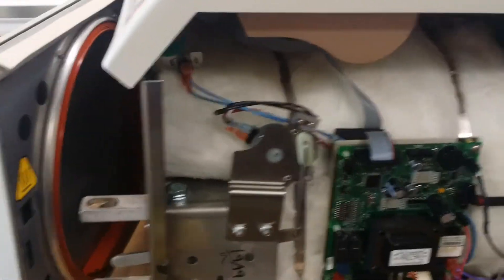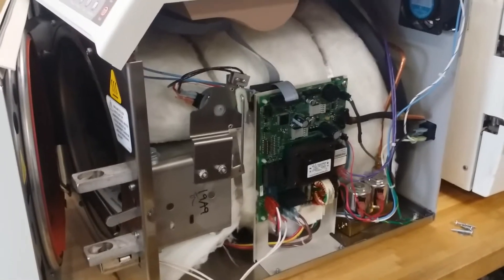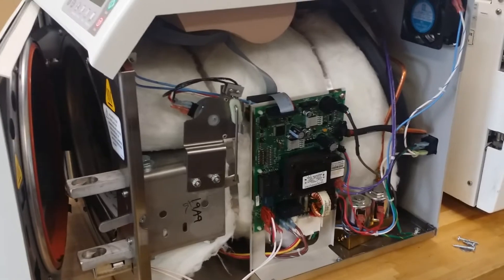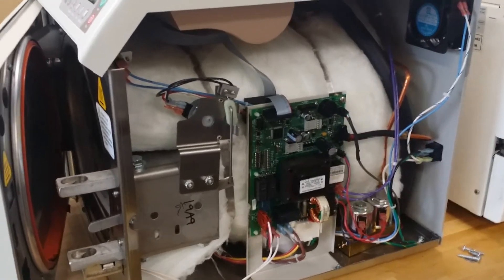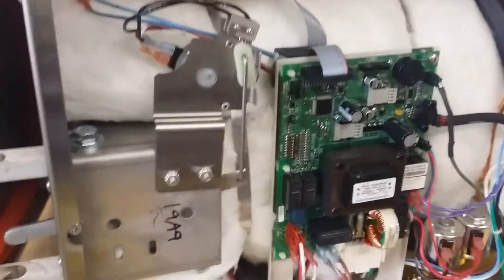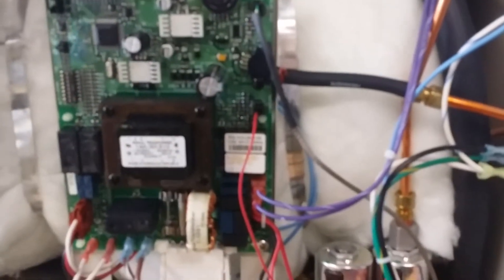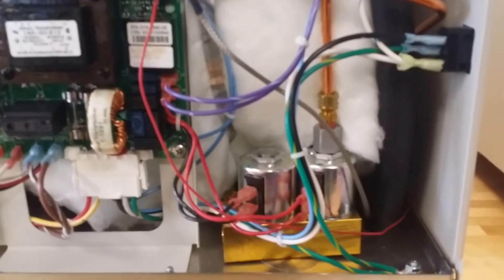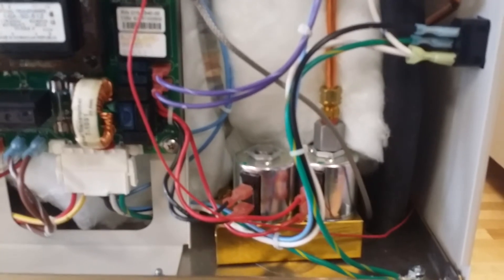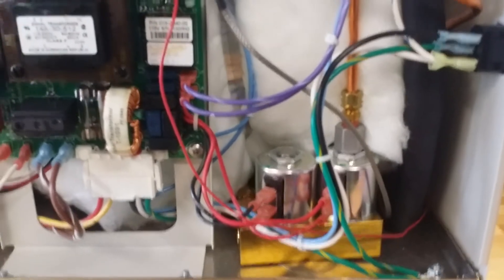To fix the problem — this machine is a brand new machine, it's never used, there are zero cycles. All Midmark automatic machines, M9 or M11, come with one control unit on the right side. We've taken off the right cover already. You can see the control board is here, and also this is the motor for opening the door. Mostly, the problems that happen are here — there are two valves: one is the water fill valve, one is the vent valve. Sometimes there's dirt inside, which will cause leaking and you will get an error code.